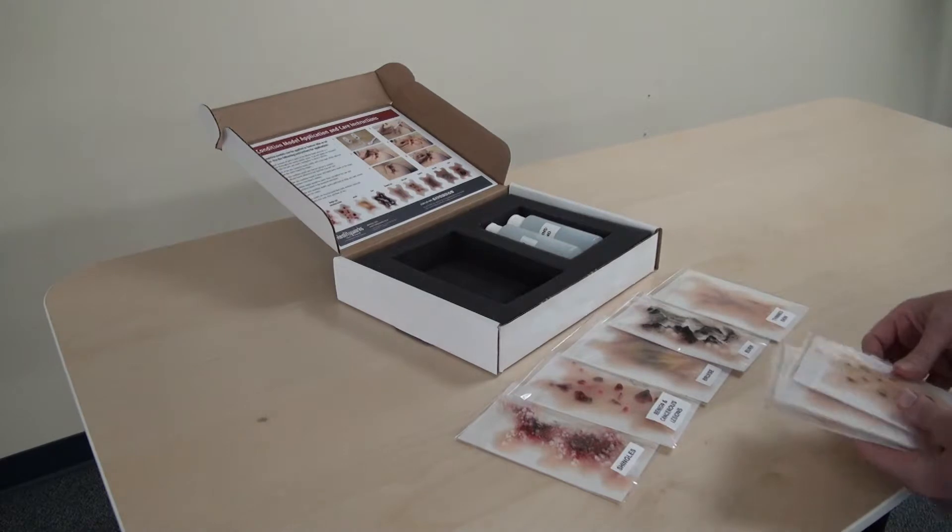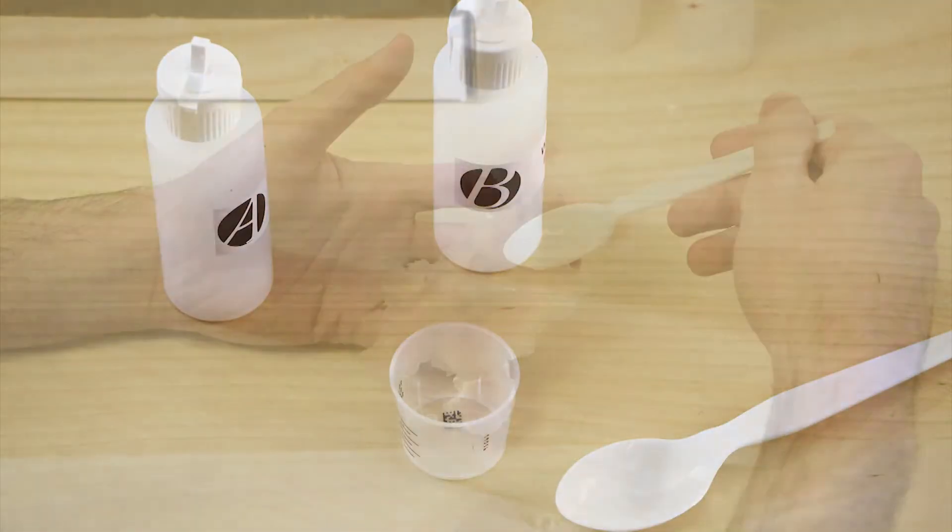Each detailed model is wearable and can be adhered to either human or mannequin skin.